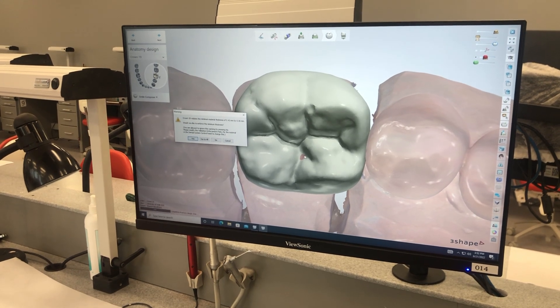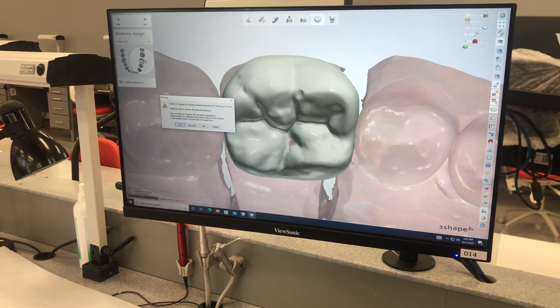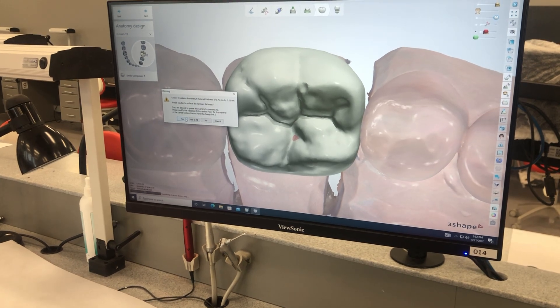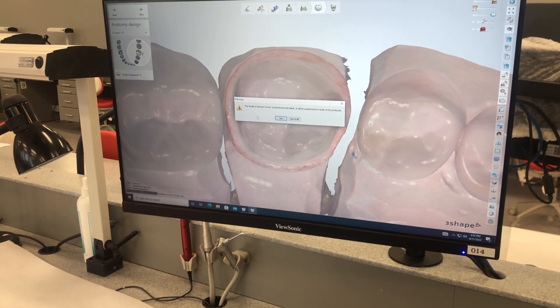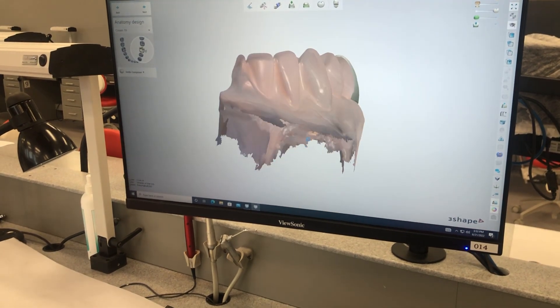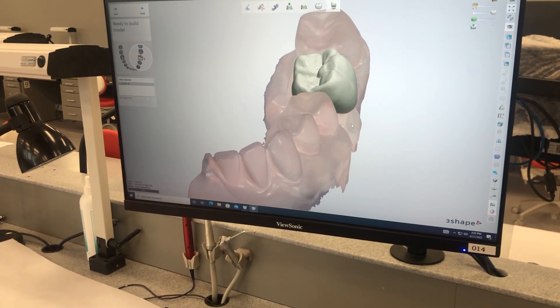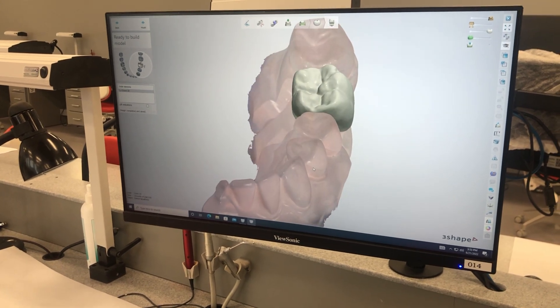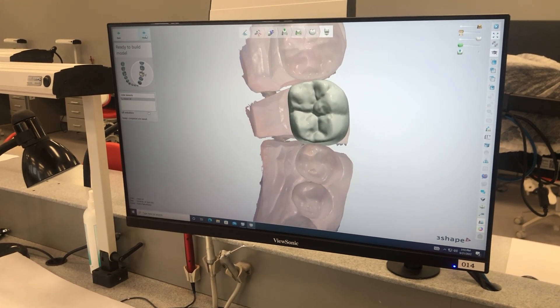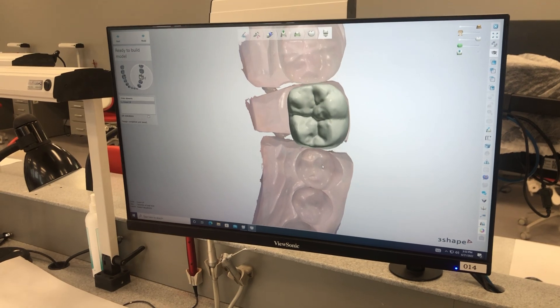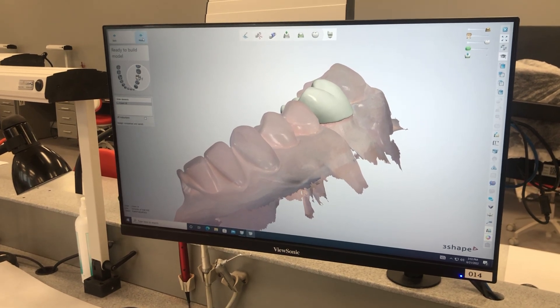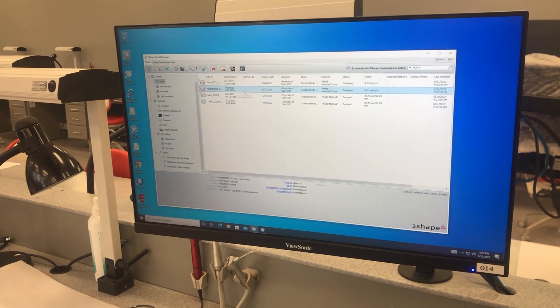It's telling us that it violates the minimum thickness standard right there. Because of that area, it's asking if you want to ignore it or go forward. We're going to say we'd like to force the minimum thickness standard. This just means it's going to add a little bit of material in that defect area — and now we're done. That's our crown, all finished. It will mill out just like that. Just make sure you have contacts and your margins are defined, then go forward and it'll give you an output model.